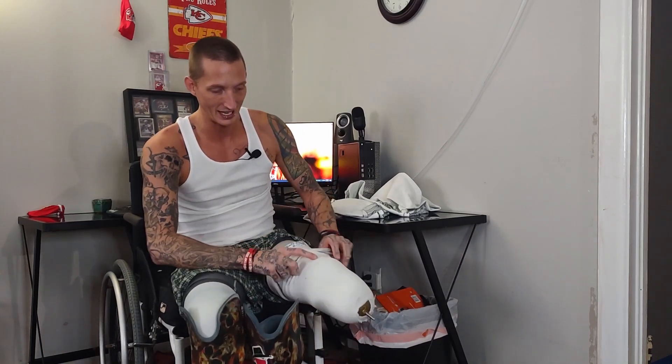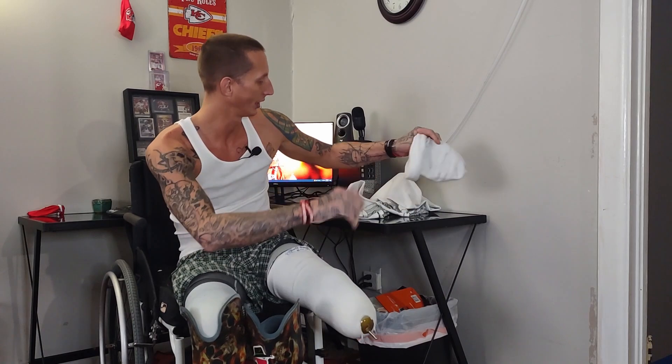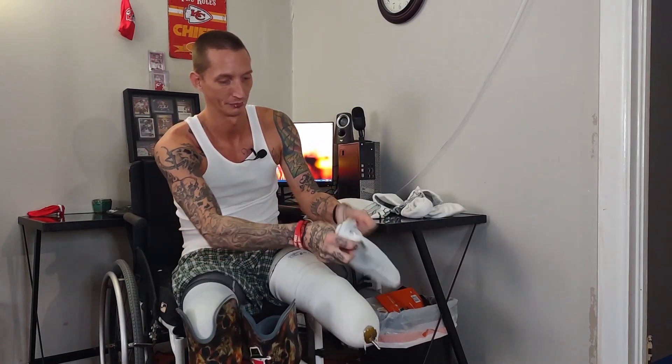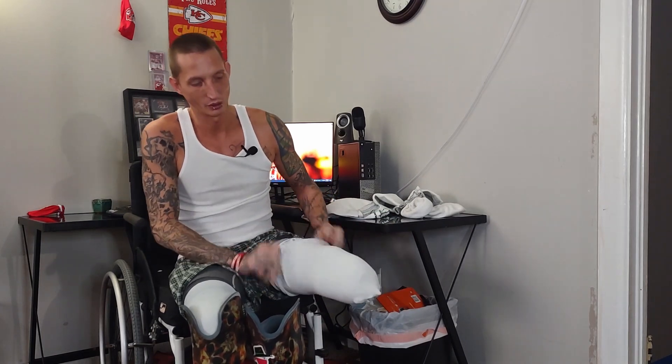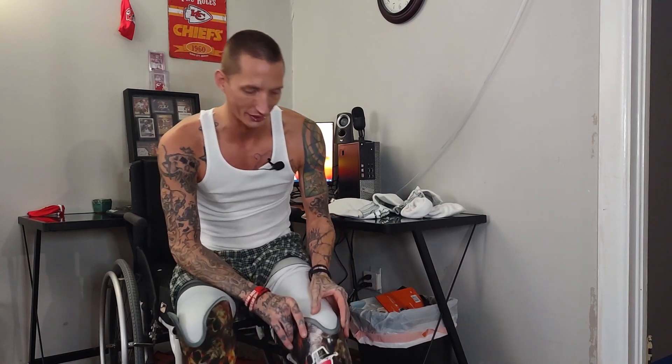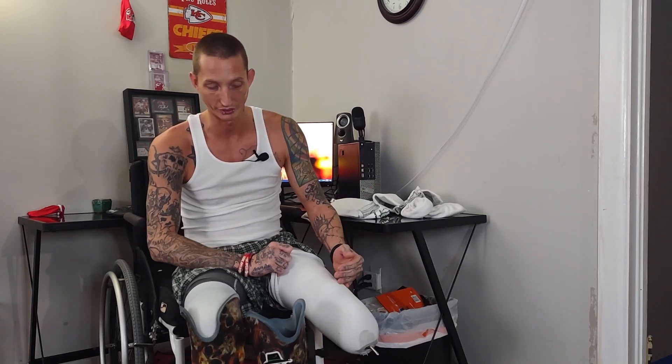So we're going to peel off a 5 and replace it with a 1. Now I've got 11 on — two 5s and a 1. I push that in and it slips in, but once it gets to where it clicks, it's too tight. So that means we went from a 5 to a 1 on this ply, and there's nothing between a 5 and a 1 that works.